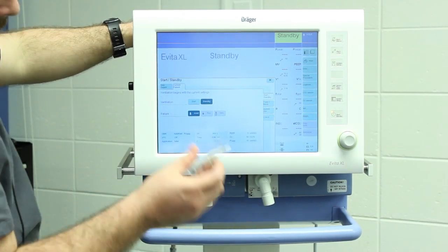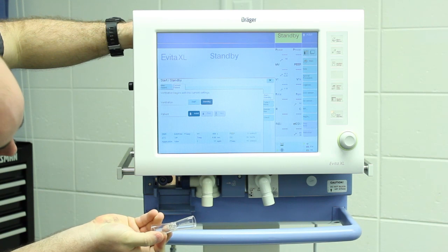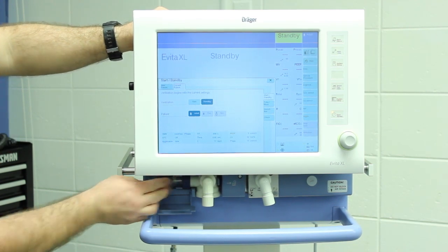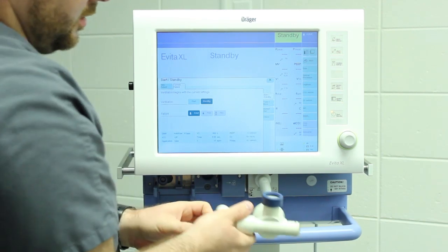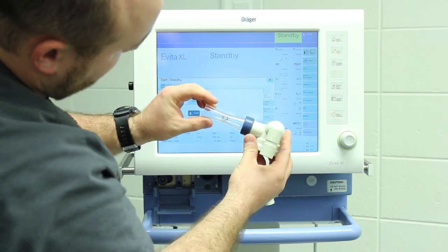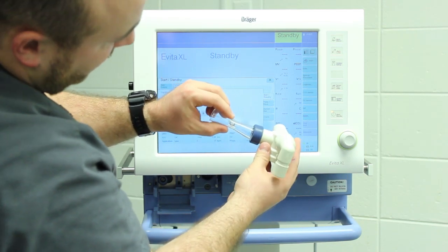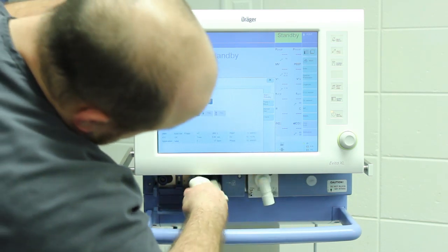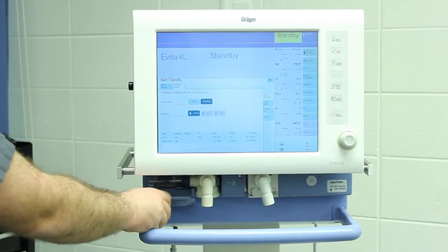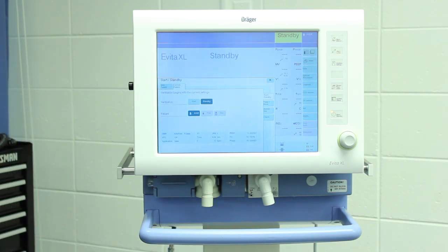The flow sensor has a little pin system — it inserts into the expiratory valve with those wires, then you push it inward and it seals itself into the expiratory valve. This one goes in, you push it in, and it seals right in there — that's exactly how it sits. Your exhaled air comes back through here. If there's any air leaking around it, it'll cause issues. There's a little flap that goes over it to protect it — put that flap over it.